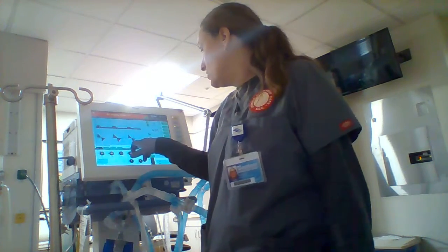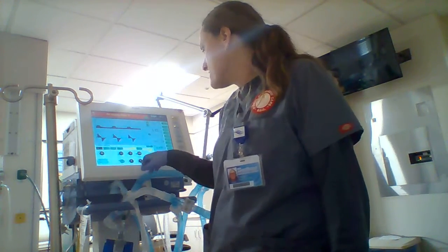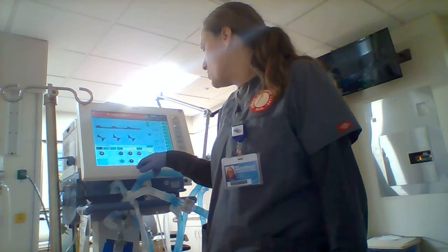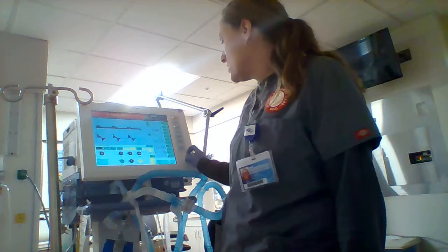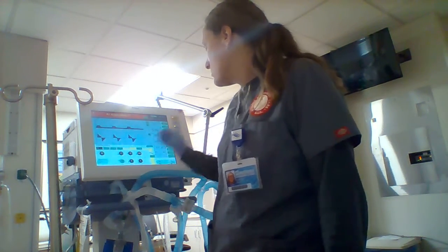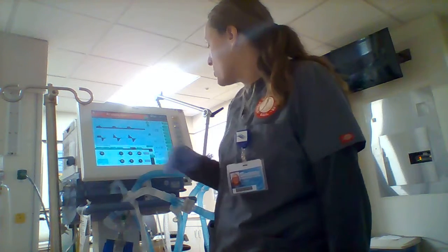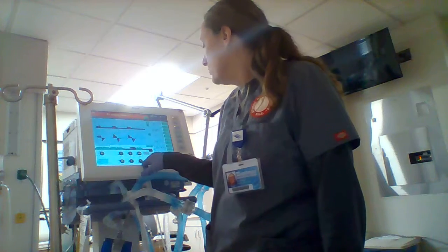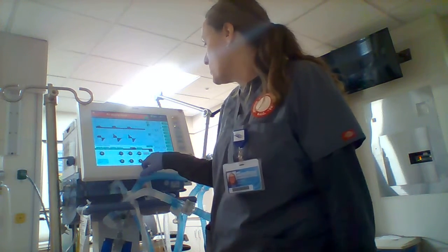Let's do pressure control. Pressure support is 13. Let's mess with that a little bit, see what it does. Okay. So now we're in pressure control. I have my pressure support at 0, so that it's not really actually doing pressure support at all.